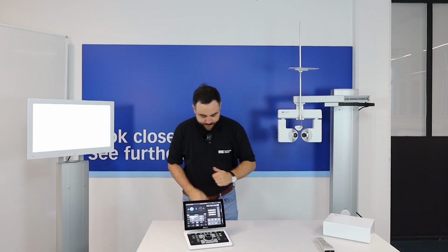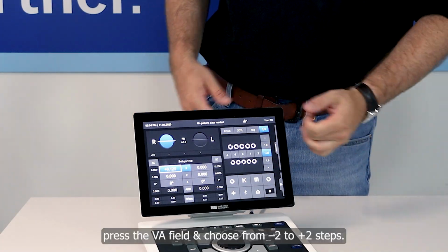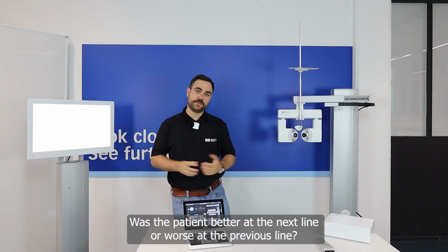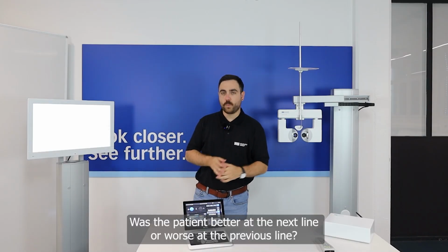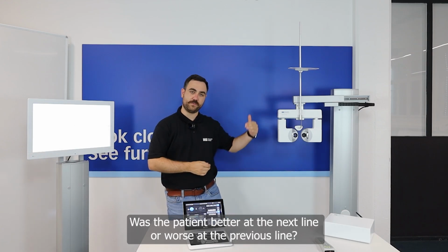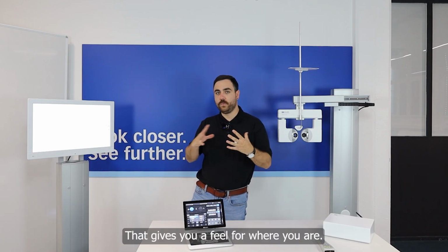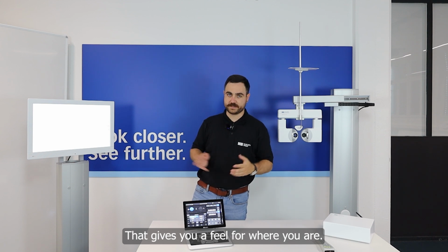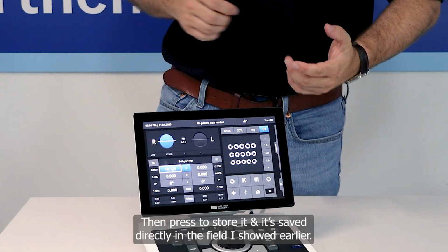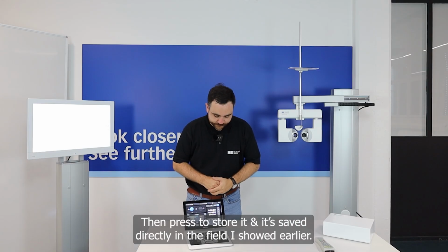If you now have found the correct visus, press on it and it will pop up a -2 until 2. That gives you the possibility to choose, was the patient better to the next vision or was it worse to the lower vision? That gives you a feeling, hey, where are we standing currently and is it nice? Then press on it and it will be stored here directly in the field I showed you before.